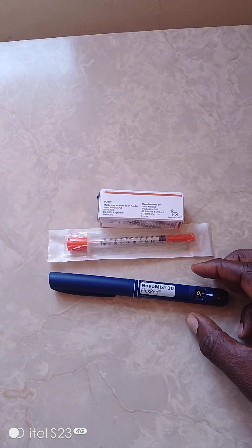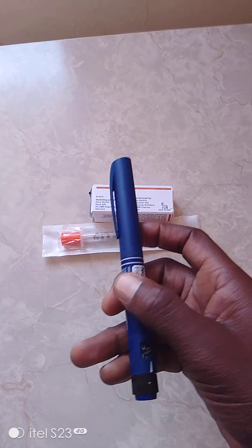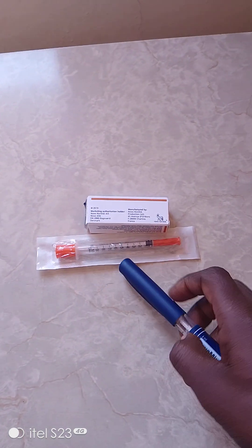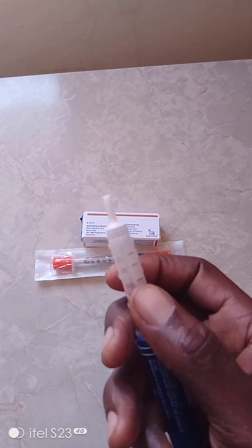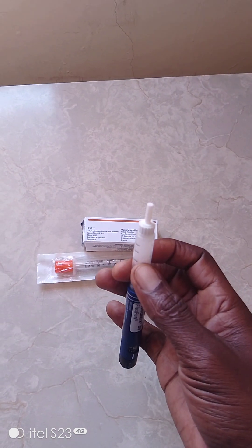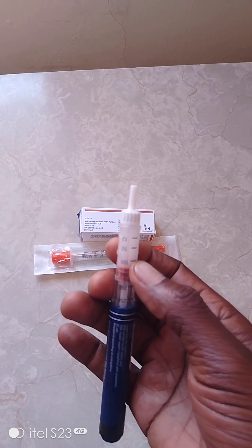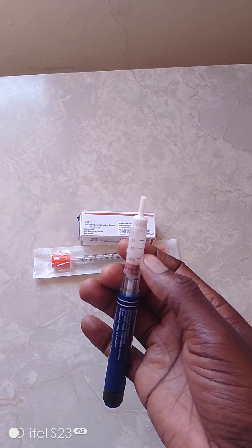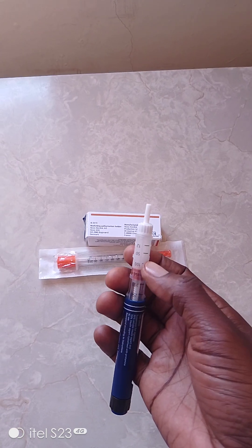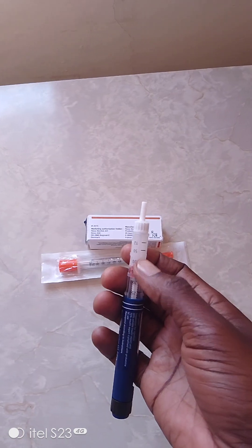As you move with it, you'll be able to know it contains insulin inside. This is a stopper you can remove. As you see, there is that whitish liquid - that is insulin already. Insulin has been pre-packed here, so you just have to be injecting yourself.